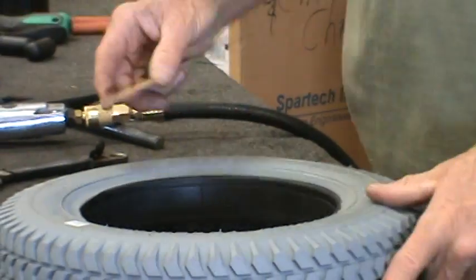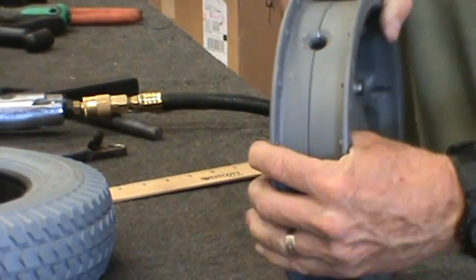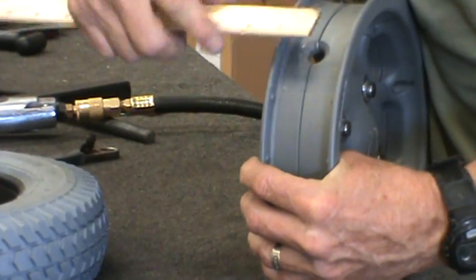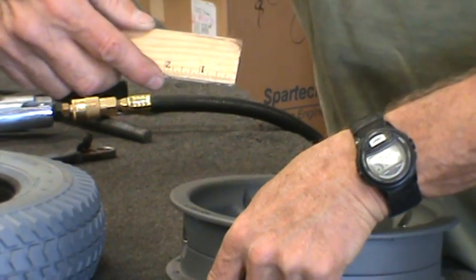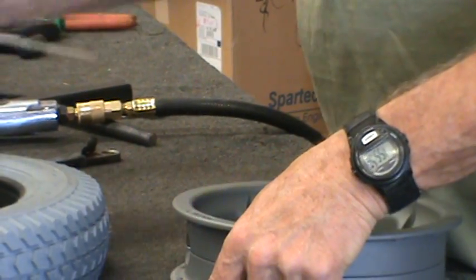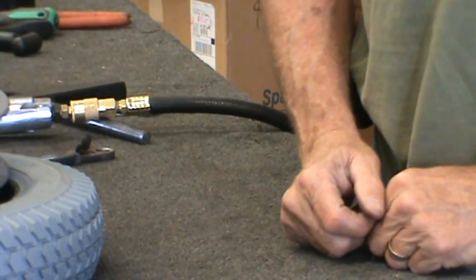Now with the wheel, you take your two piece wheel, put it together, and again measure the inside width. And as you can see it's right at two inches. So that's a good match there too — it will compress in there nicely. It's as easy as that.